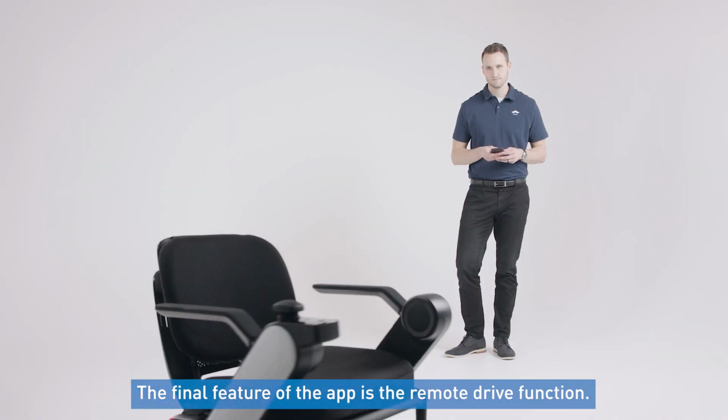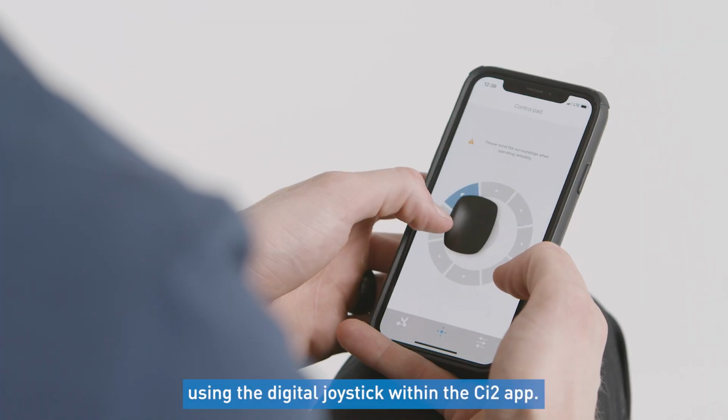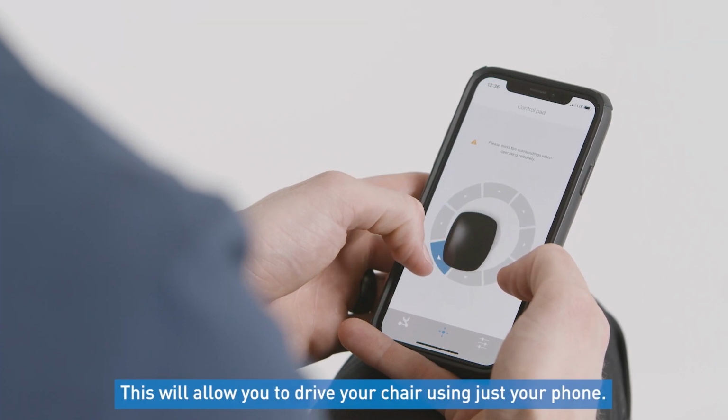The final feature of the app is the remote drive function. This allows you to drive the chair remotely using the digital joystick within the Ci2 app. This will allow you to drive your chair using just your phone.